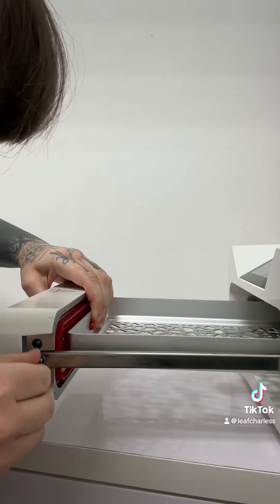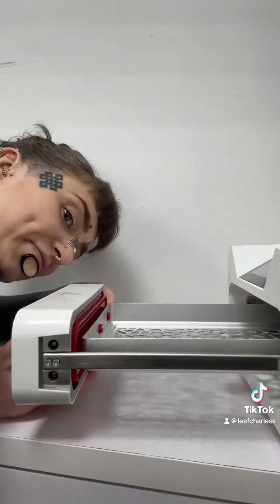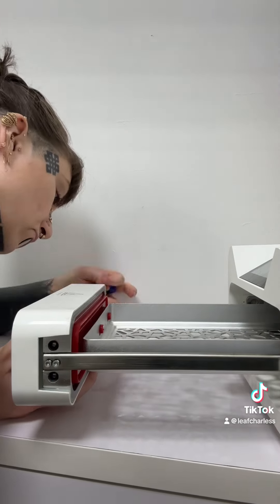This is an outtake I just thought was funny! Clipping it all back together again. This is the fiddly part — screwing it in with your fingers. I do all this first thing in the morning because it hasn't been used yet, so it isn't warm and it's easy to handle.